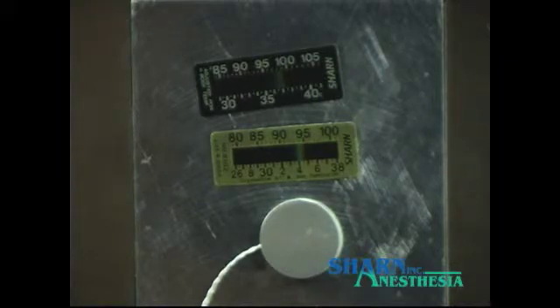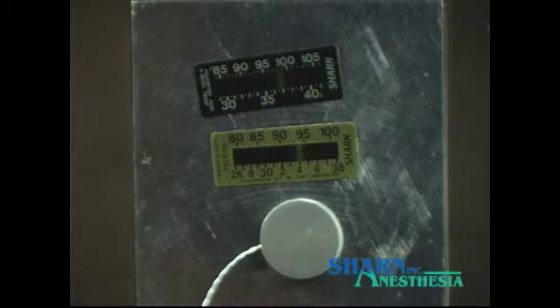Core temperature is typically 98 degrees Fahrenheit. With the hot plate set at 94 degrees, this strip should display 98 degrees.